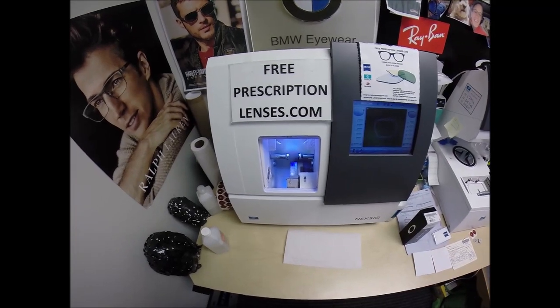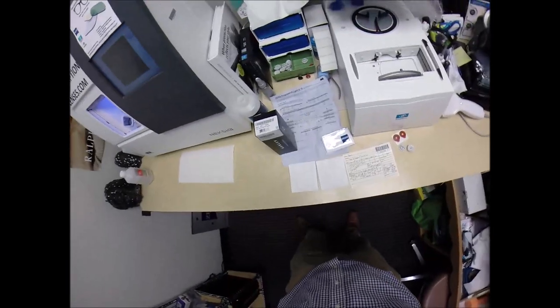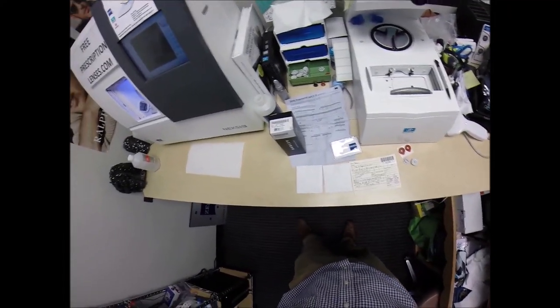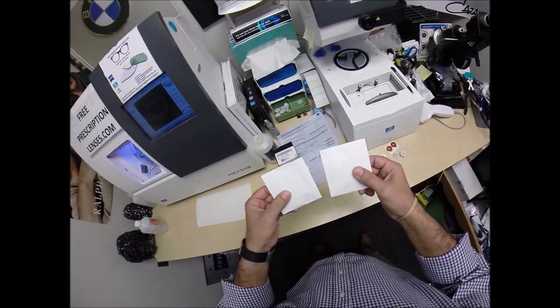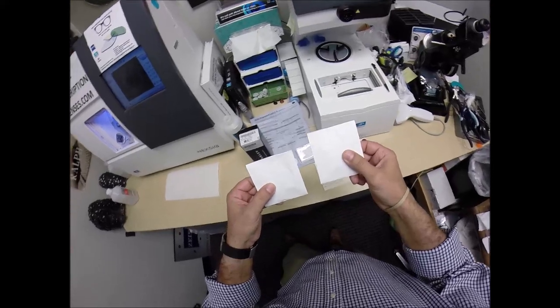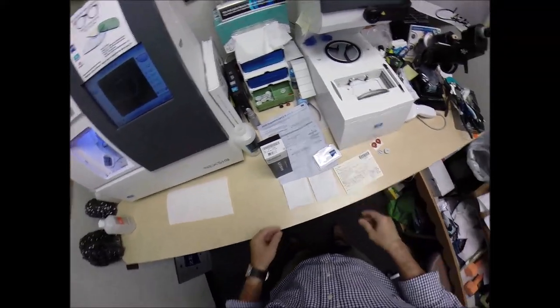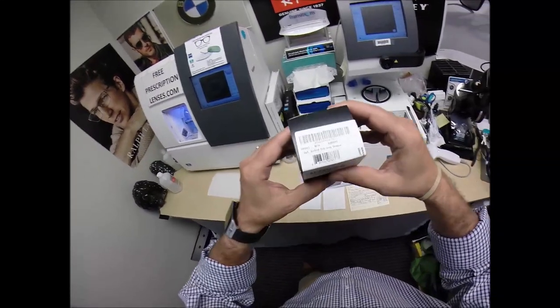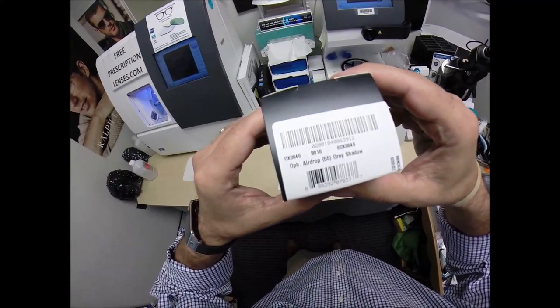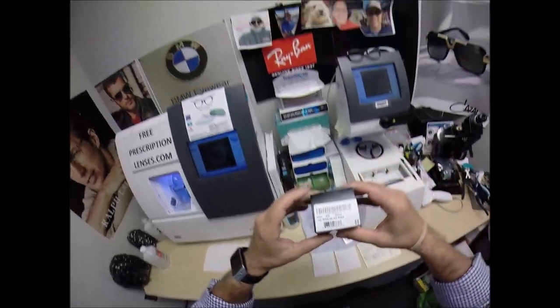Just mow better. I'm going to have you seeing mow better, looking mow better, and show everyone else how I bring that love and feeling back to glasses when I cut the Zeiss progressive lens. The Zeiss Light D digital free-form progressive lens with Photofusion Extra Gray and DuraVision Blue Protect Anti-Glare for your Ray-Ban, your Oakley 8046 AirDrop.